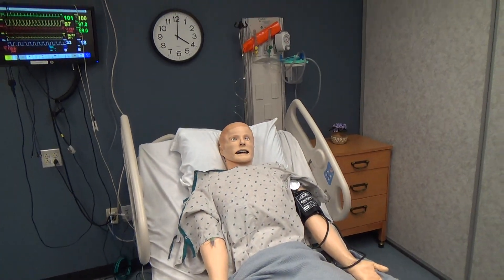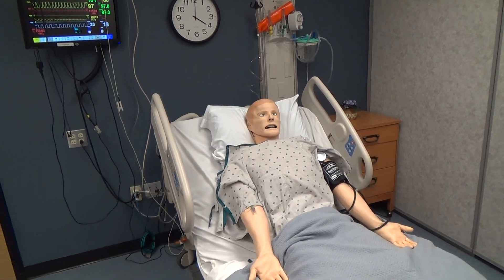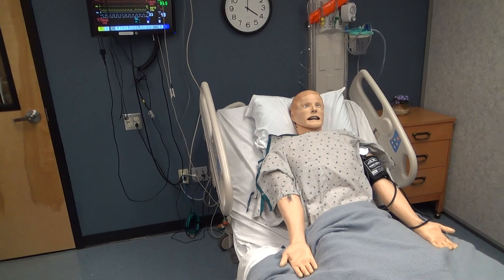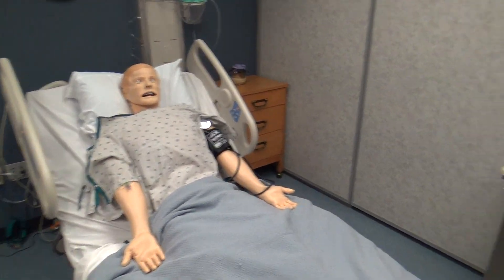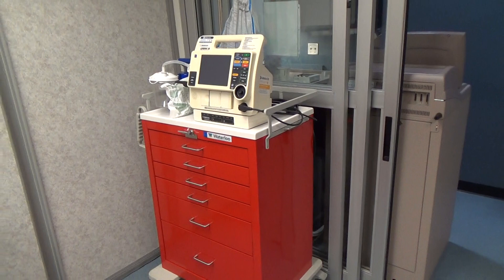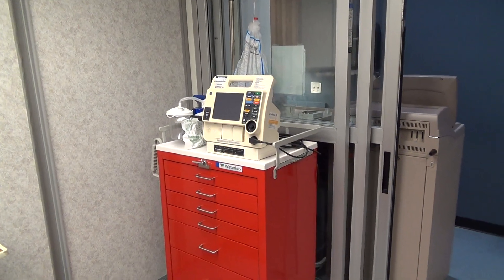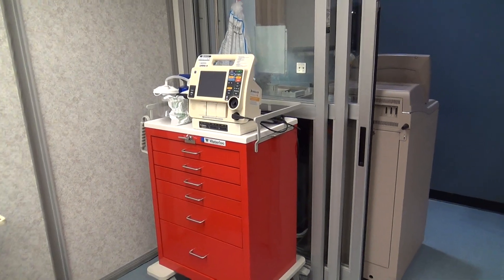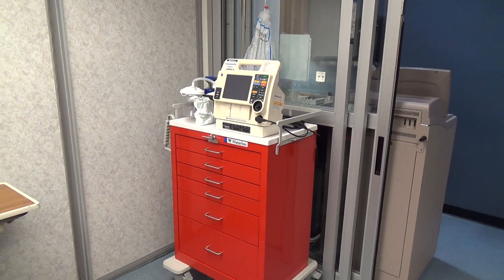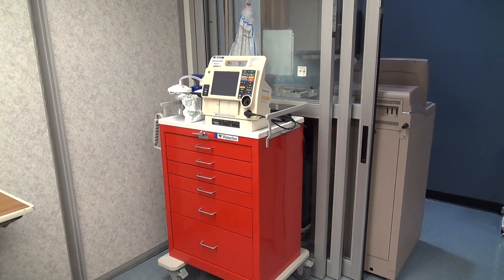If something goes wrong with your patient and they require a rapid response or a code blue, you can call it overhead. Here is your code cart, fully stocked and ready to go. If you call rapid response or a code team, I will come in to assist you and we'll go through it.